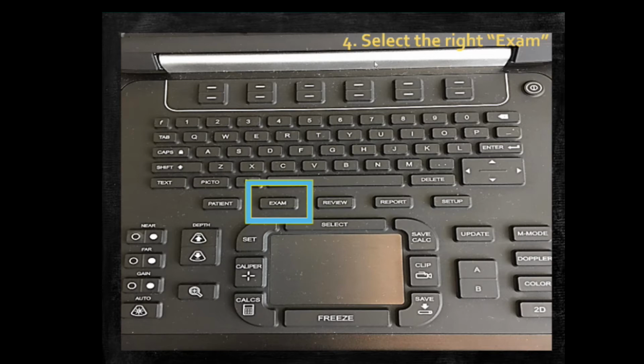Similarly, there's other presets for vascular, for muscle tissue. So just think about what you're actually looking at. What is your binary clinical question, and then choose that exam. This predominantly is important because it's a time-saving step. Historically, I've seen lots of people being unfamiliar with using this ultrasound, and so what they'll do is they'll complete a cardiac exam in abdominal mode, and the image quality doesn't really suffice when that happens. So this is really key. Just make sure you select the right exam to start off with.